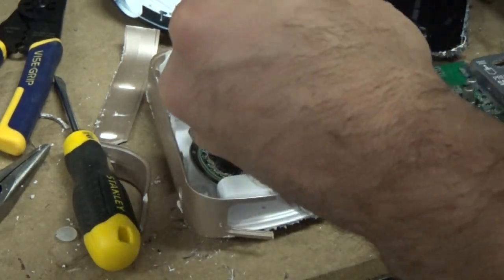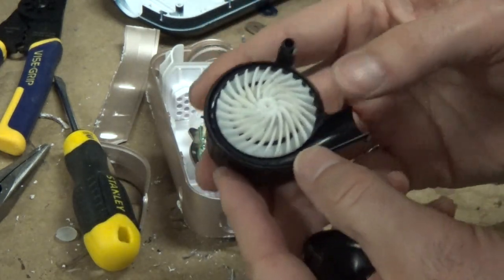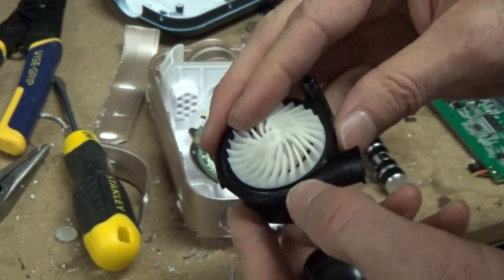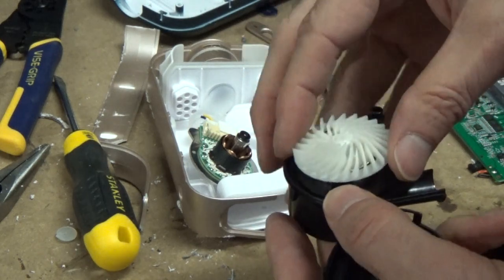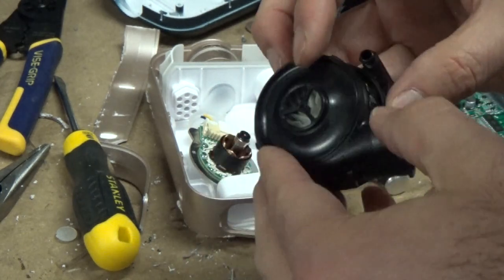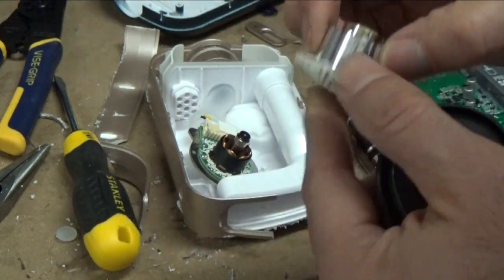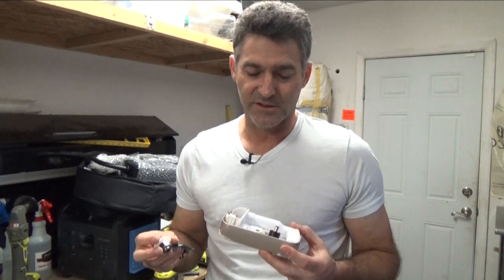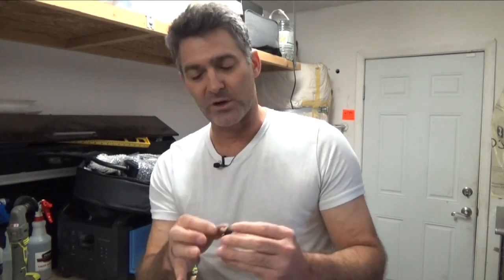All of that creates pressure, which is what's supposed to open up your airway. Can we open this up more? We sure can. Let's go ahead and pop the side there. Correct me if I'm wrong, all you engineers out there — is that an induction motor? We open that up and you can get a better look inside. Now I've seen inside of ResMed machines and Respironics machines — they're definitely different than this. That's a small cavity there for creating airflow. Typically the motors are like twice the size of this, much larger. That might explain why it's so loud.